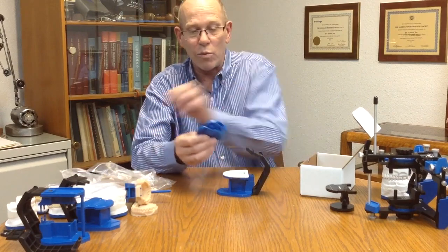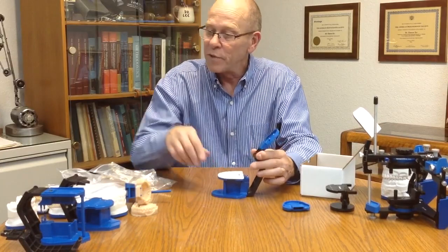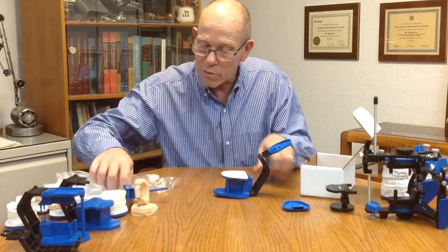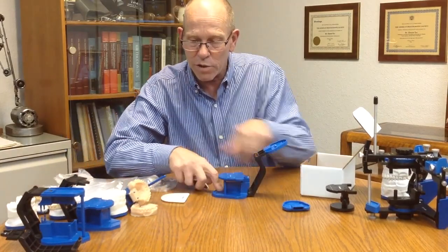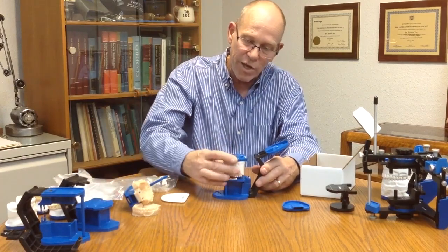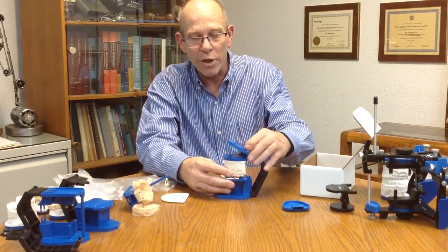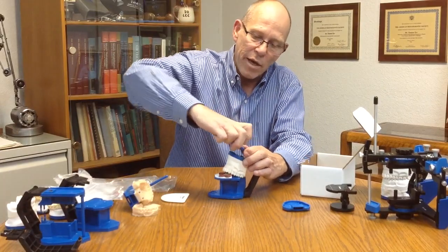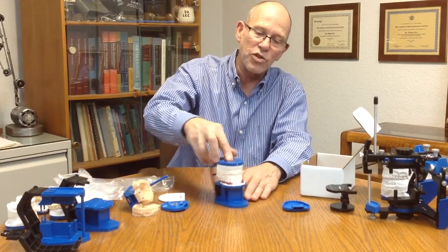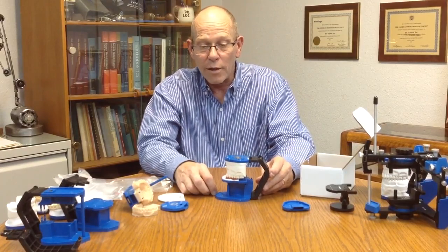The kit does come with one set of standard mounting plates that we can add to the PAL articulator. Then we can add an index tray if we want to the COI platform. And then we can just set our model in here and use that to mount conventional standard plaster models by adding plaster to the plate and the model, rotating around to make a connection that will then look like this. So you can see how we can mount standard study models directly to the PAL 2.0 articulator using the COI index tray.